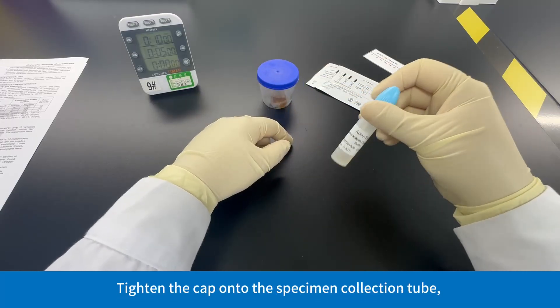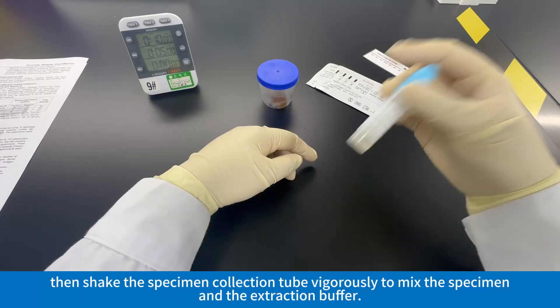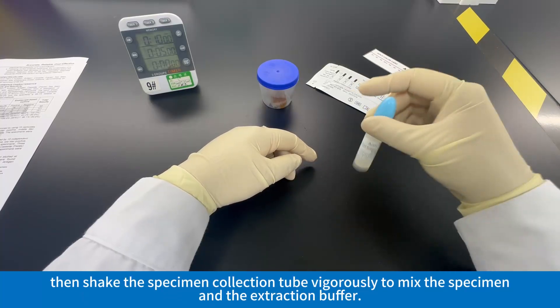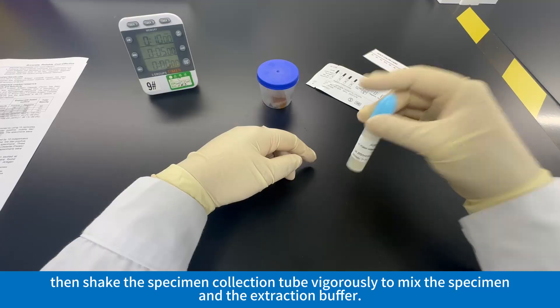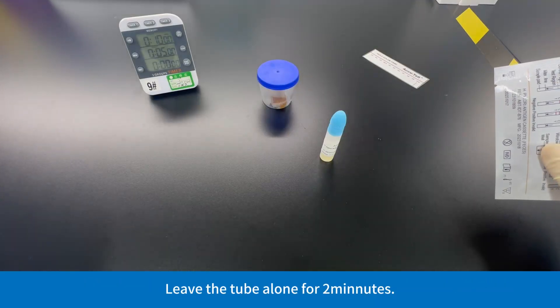Tighten the cap onto the specimen collection tube, then shake the specimen collection tube vigorously to mix the specimen and the extraction buffer. Leave the tube alone for two minutes.